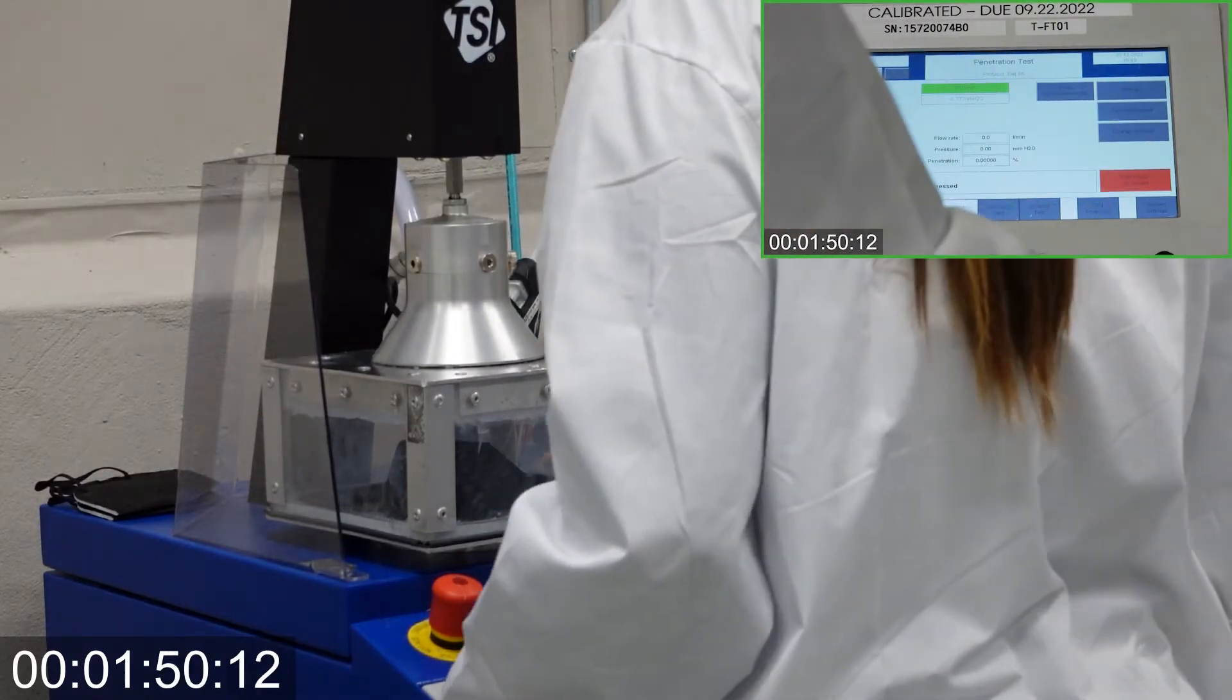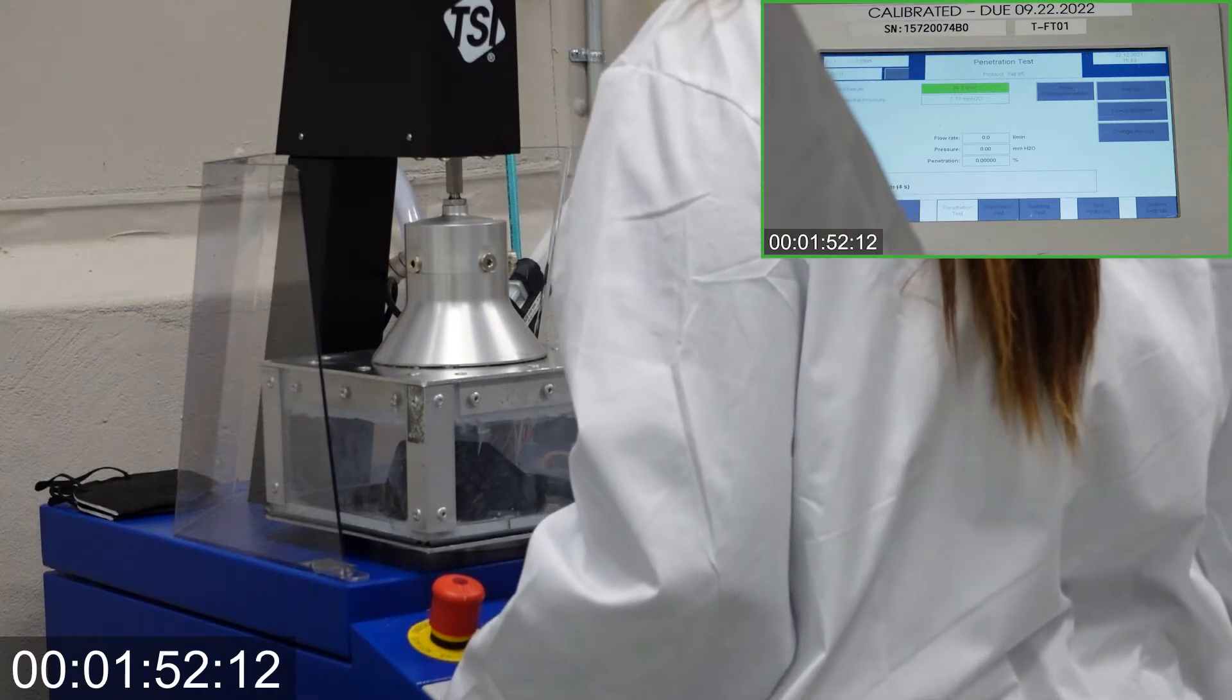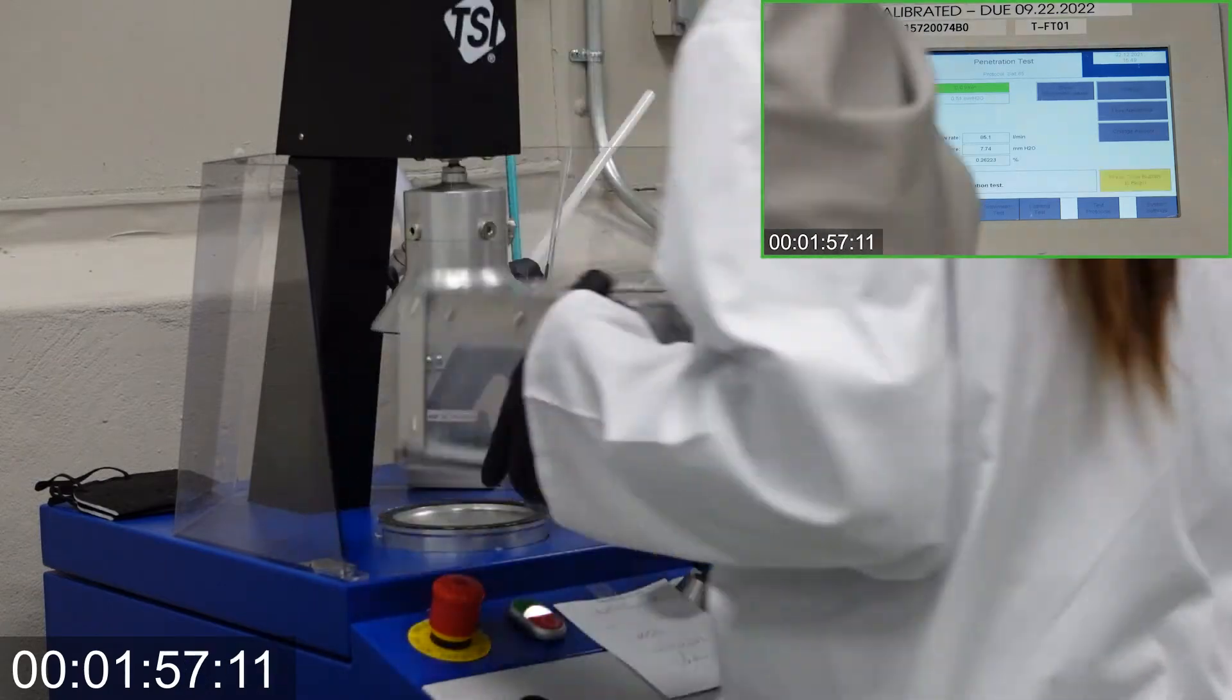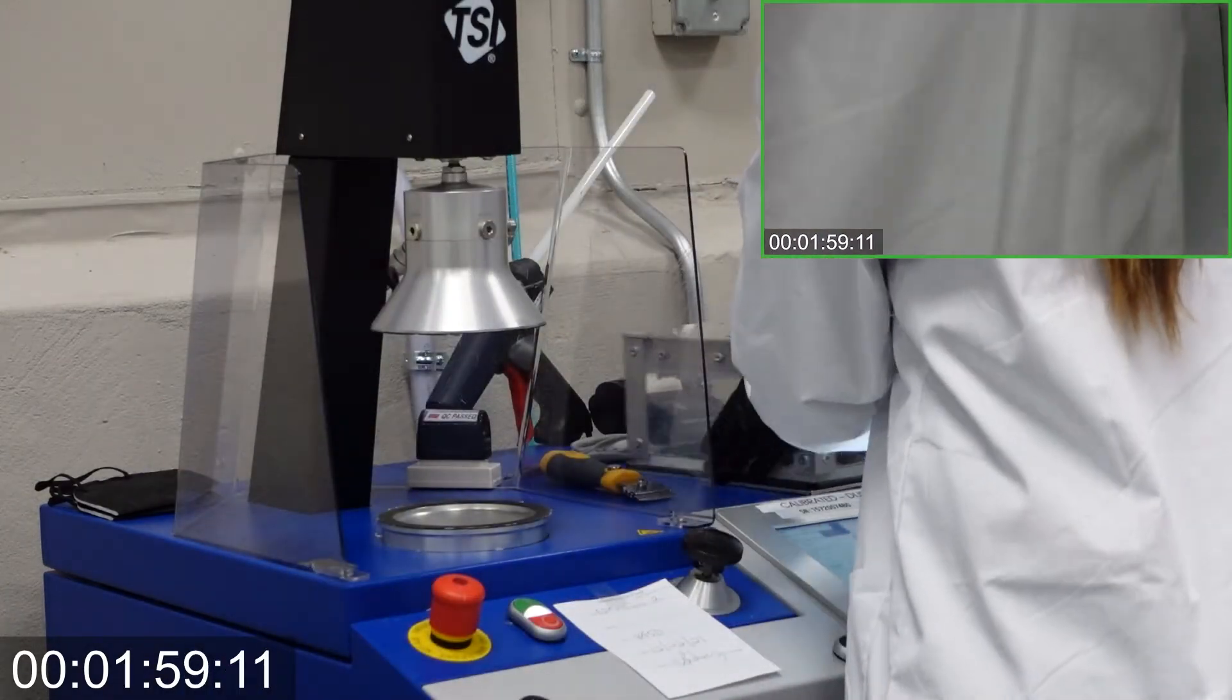We individually test a number of masks and respirators daily according to the batch size and military standard 105E sampling plan implemented by our quality control procedures.